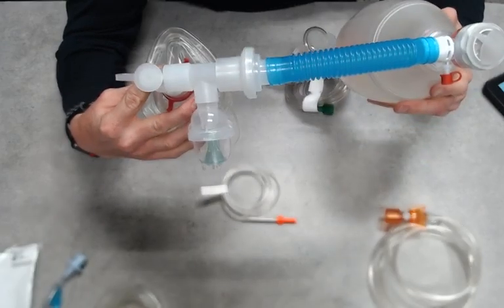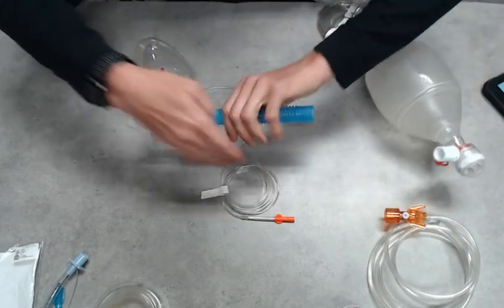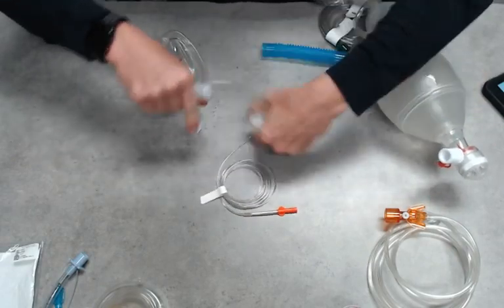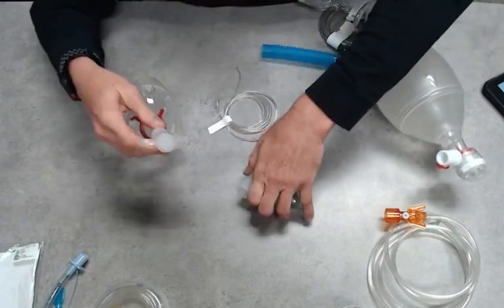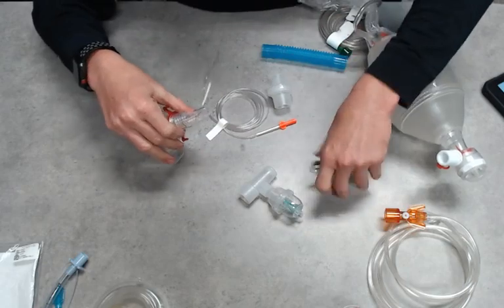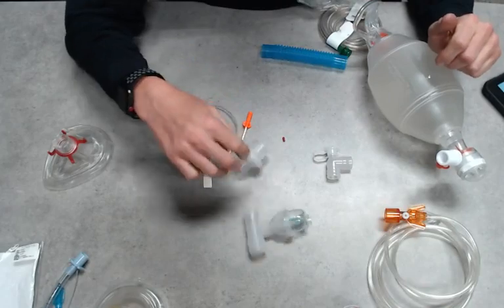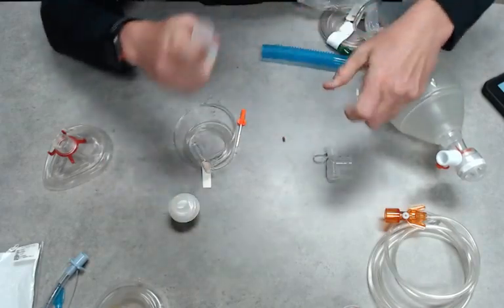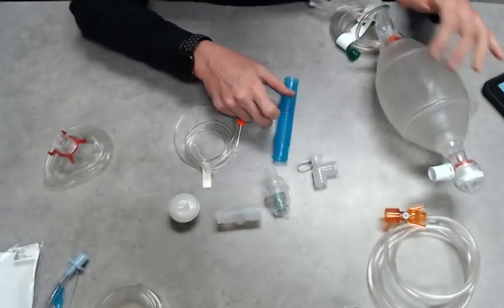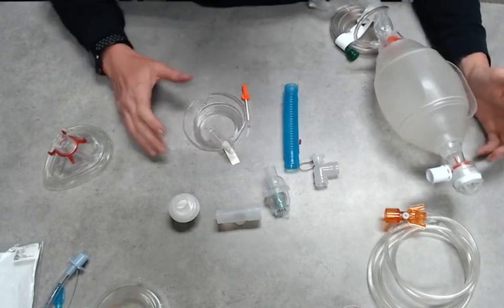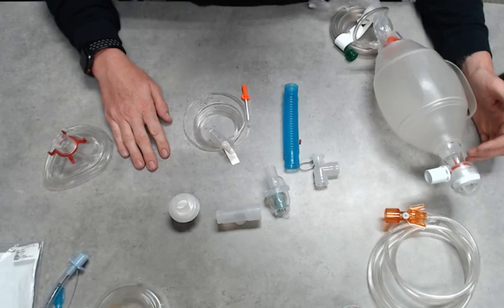Again, I recommend that you guys play with this equipment. Your department or agency may have different types of equipment than what I'm showing you here, but play around with your adapters, your fittings. Make sure that you know how to do this before that call comes up, because we all know under stress and under those time restraints and a crashing patient, that's not the time to figure this out. So have fun. If you have any comments, please share. Thank you.